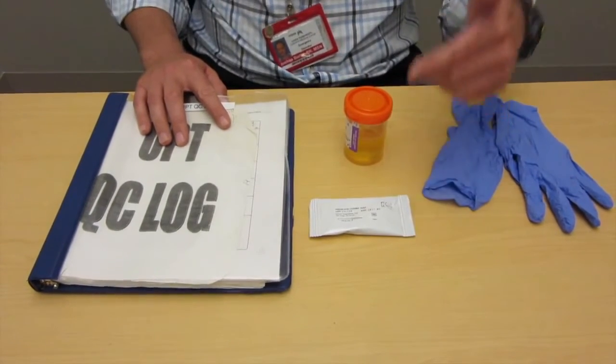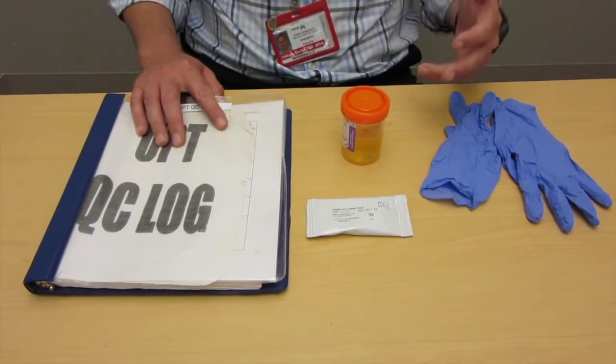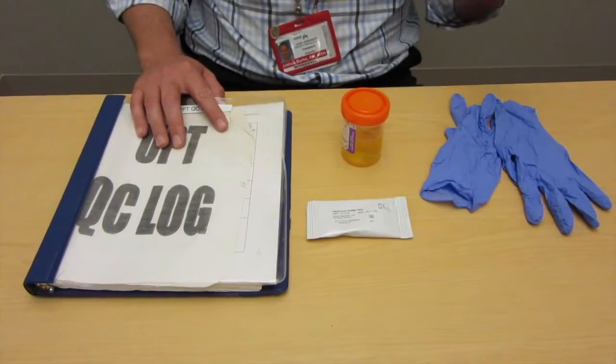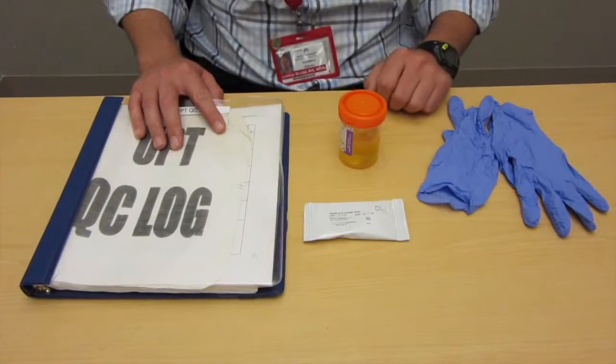So first of all we want to do pregnancy tests on pretty much any woman presenting to the emergency department that is over 12 and less than 60. Think about a very broad range there.